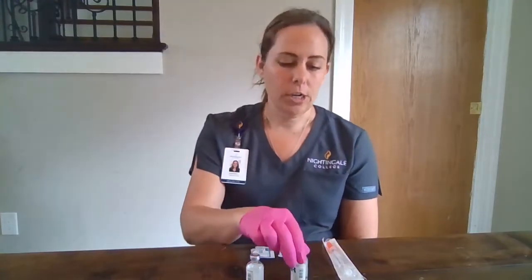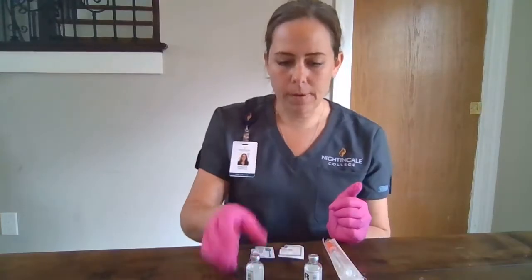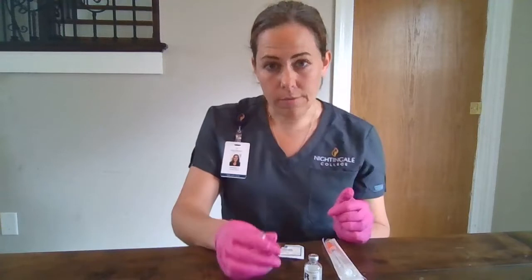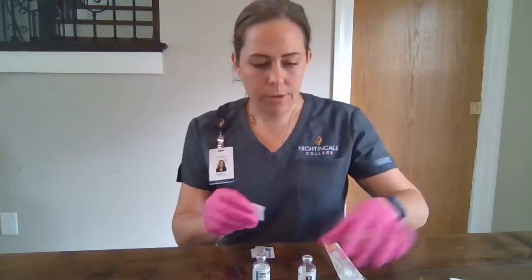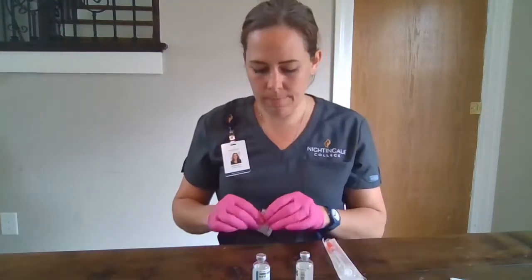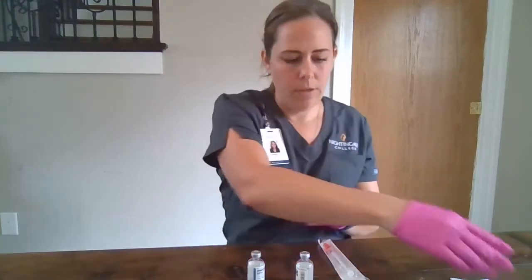We're going to start by rolling the vials in between our hands. This helps resuspend anything, as well as warms it back up to room temperature before we administer it. We also want to make sure that our regular insulin is nice and clear. NPH is a suspension, so that's cloudy by nature. Next, we're going to clean off the tops of each vial.